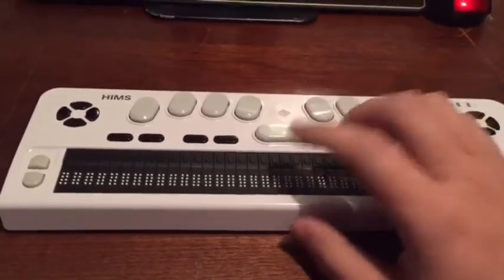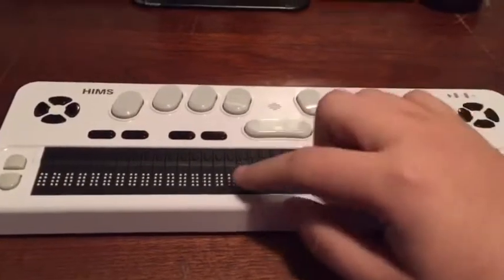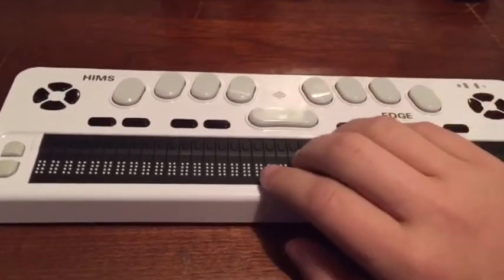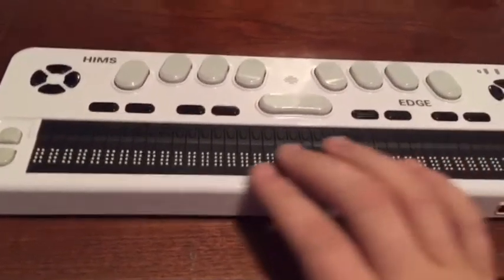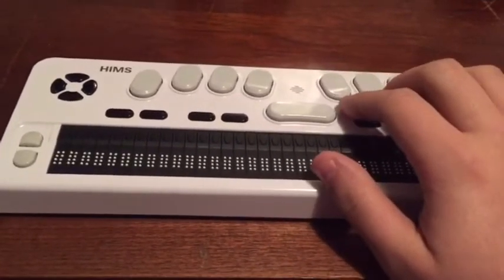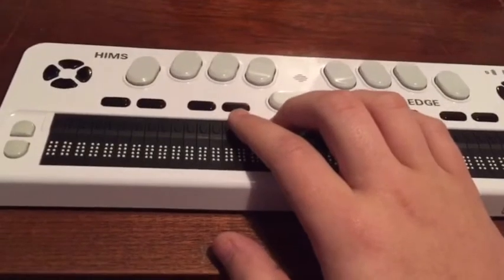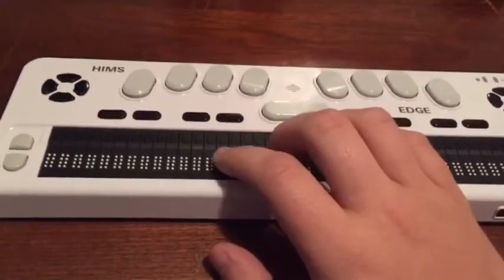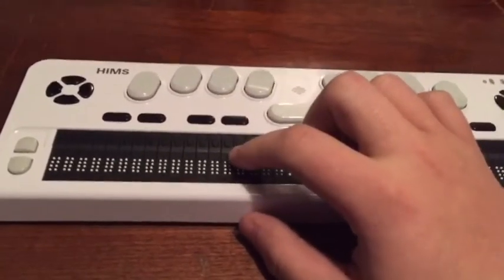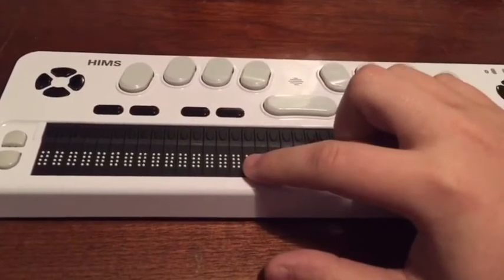Okay guys, if you're new to this series, the Braille Life series — what you're looking at right now is the Braille Edge 40 from HIMS. This is a refreshable Braille display that allows you to create documents using Braille in a digital, computerized format. It allows you to do different things like recording notes, making documents — Braille documents, text documents, DOC and DOCX documents. I've been experimenting mainly with the .BRL Braille document format and haven't explored the other file extensions quite yet.